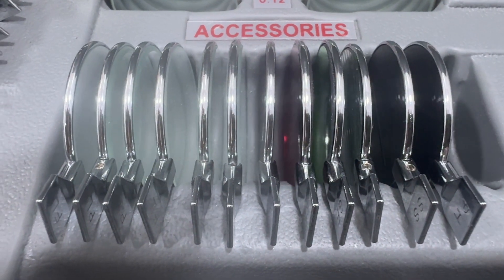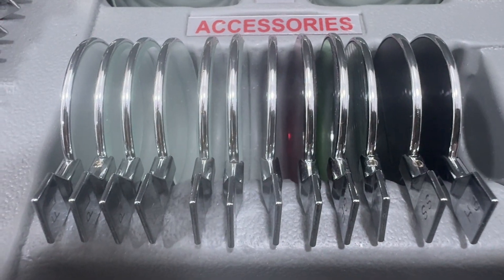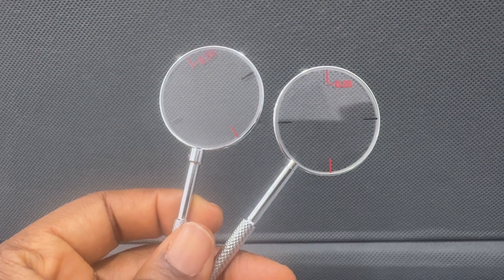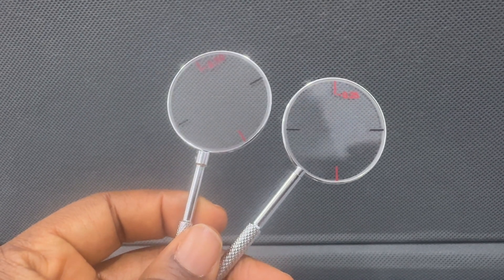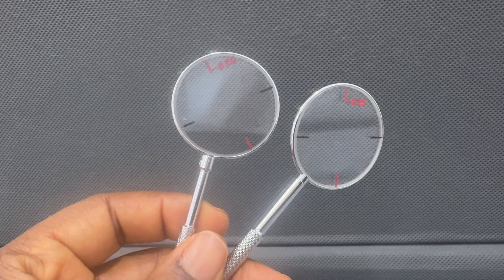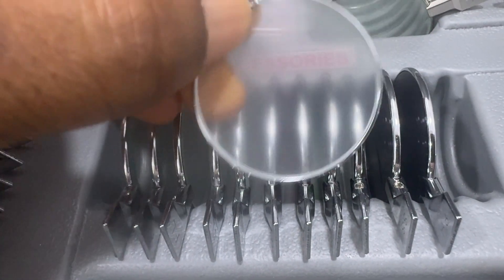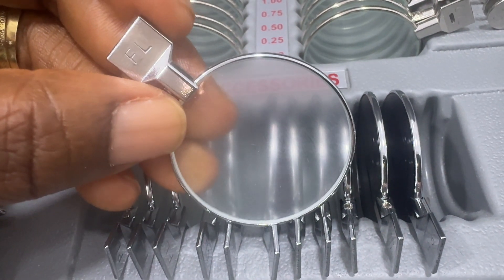For the accessories, we have the Jackson cross cylinder, which is used to refine the axis and the power of cylindrical prescriptions — I have a video on that. This is a frosted lens, which also acts as an occluder.